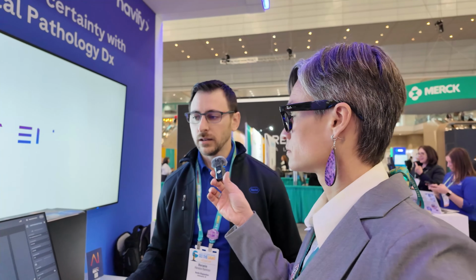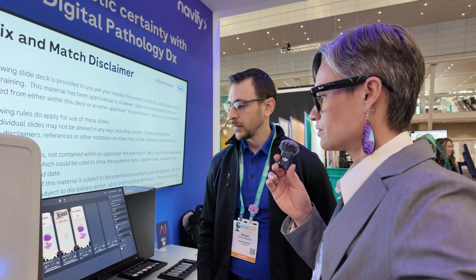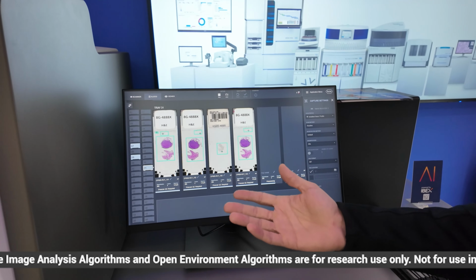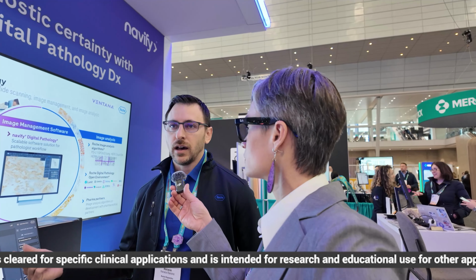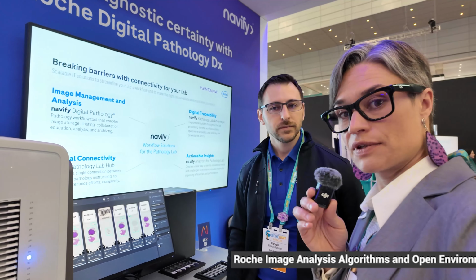Because one thing I didn't mention is our software, the viewing or the image management system, is actually cloud-based. So pathologists can access it from anywhere as long as they have an internet connection. Perfect. So you can do a remote sign out if you're ready for it. Yep. And one thing I want to mention, the scanner has capability to scan pretty much anything except fluorescence. So it has capabilities to scan basically H&Es, IHCs, special stains, frozen sections. It can even do cytology, and it can do up to 15 layers. Oh wow, 15 layers of Z stacking?